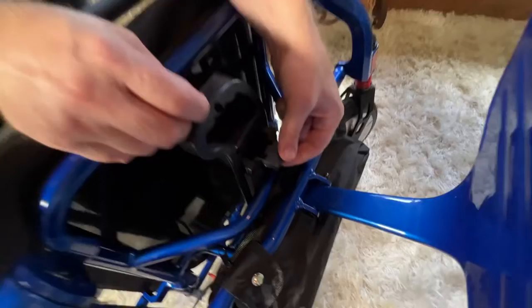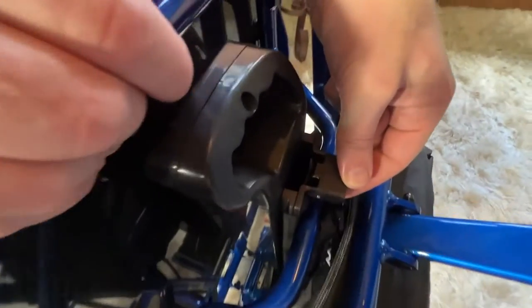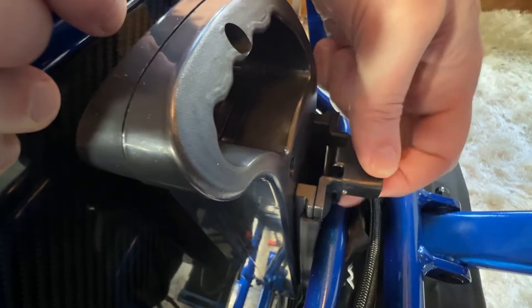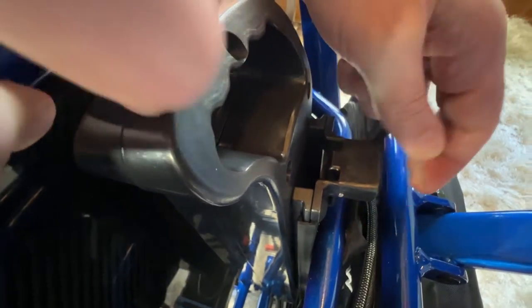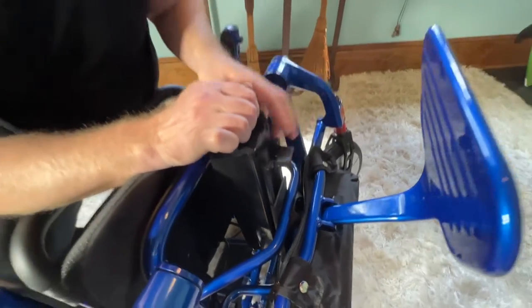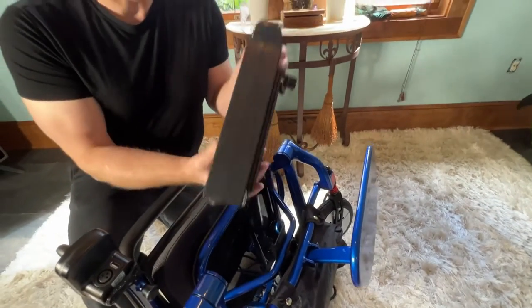Let's take a look at the side here. There's a little latch right there — see, I'm pressing it and you can see it swings out. So I can't pull the battery out unless I release that latch. Then I pull the battery right from the top and the battery comes out.